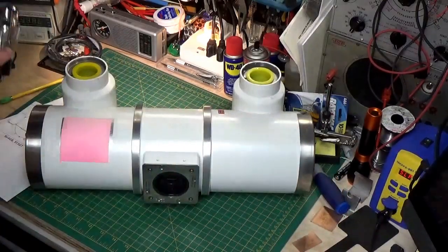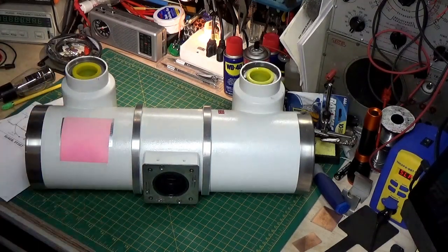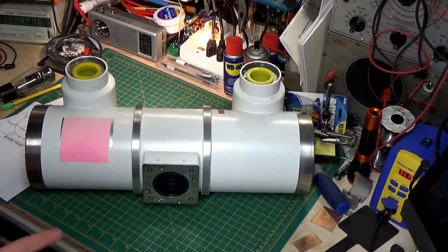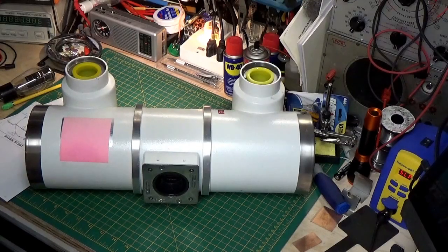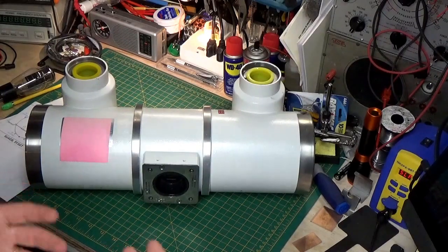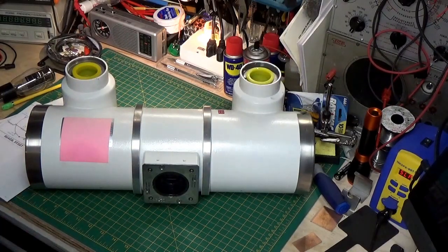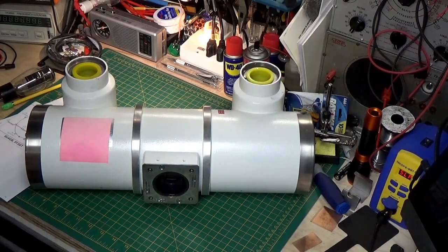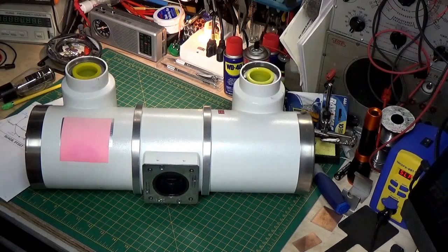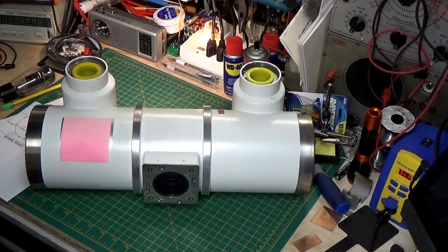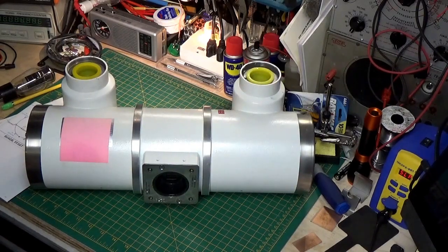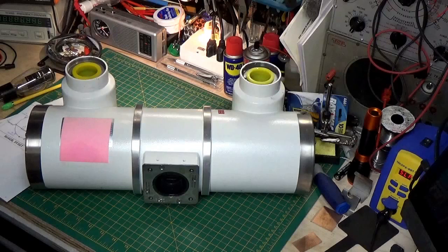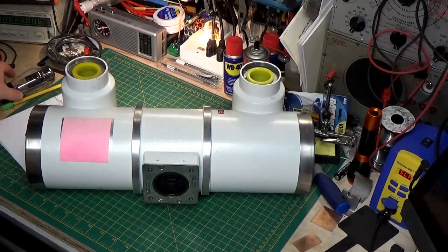Now, when we start accelerating it at higher voltages, like in an old picture tube of a television, we're on the magnitude of thirty kV or thirty thousand volts. That is enough energy that the radiation does have enough energy to penetrate the glass. In the old days, televisions didn't have much shielding on the front of them, and the radiation could get out. If you were close enough, you could be exposed to radiation. The old saying that your mother says, don't stand too close to the TV, it'll hurt your eyes. That's true, because your eyes were being exposed to radiation. And your eye is actually the most delicate, sensitive organ in your body when it comes to radiation exposure.